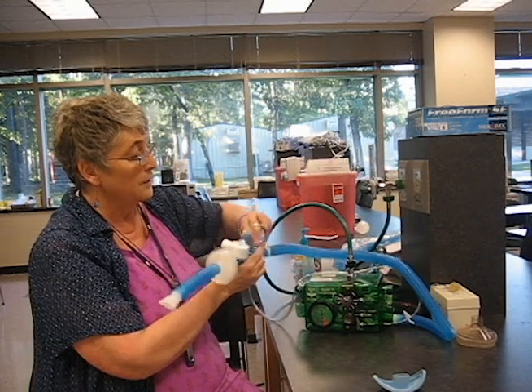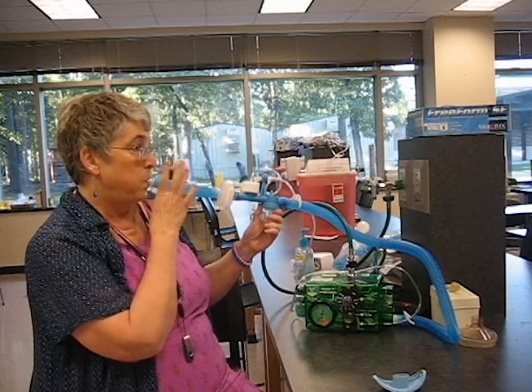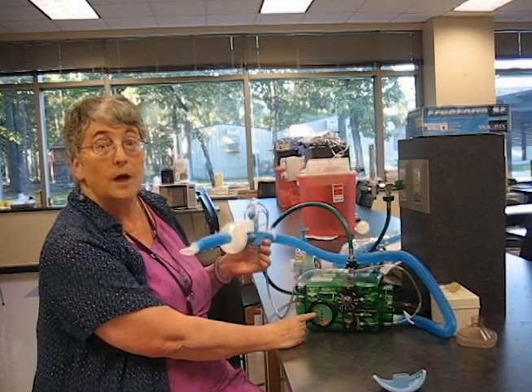This is what it sounds like if you have a leak — I'm going to disconnect one of these lines. Notice the pressure never rose, and it never stopped trying to give a breath.